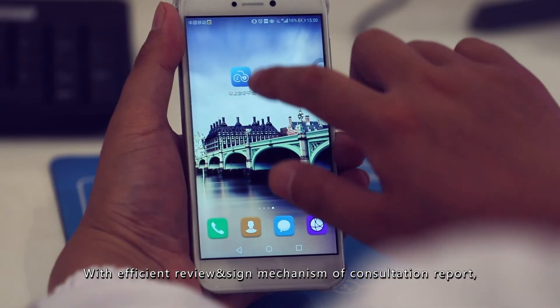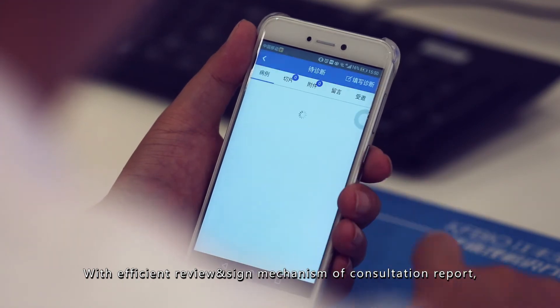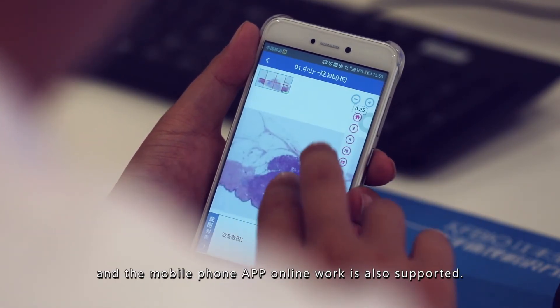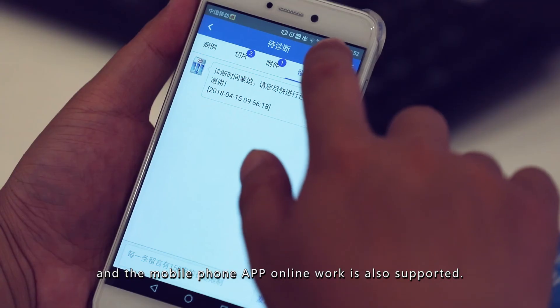With efficient review and sign mechanism of consultation report, perfect quality control system, and the mobile phone app online work is also supported.